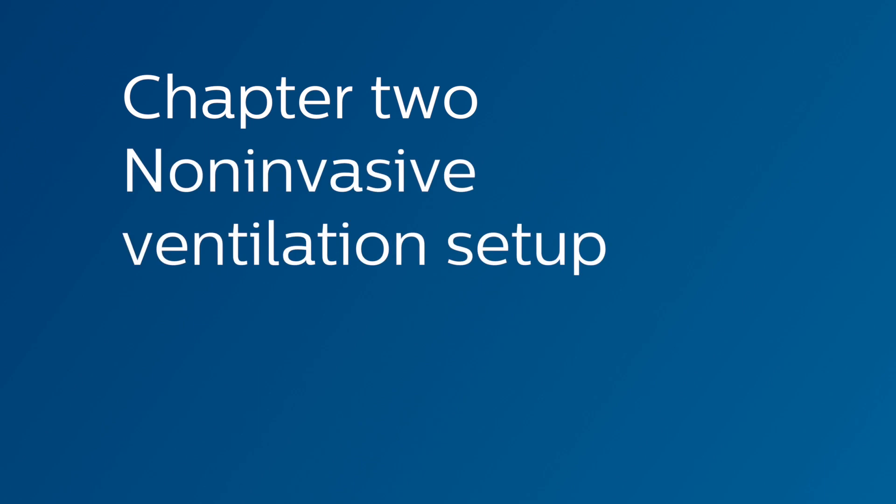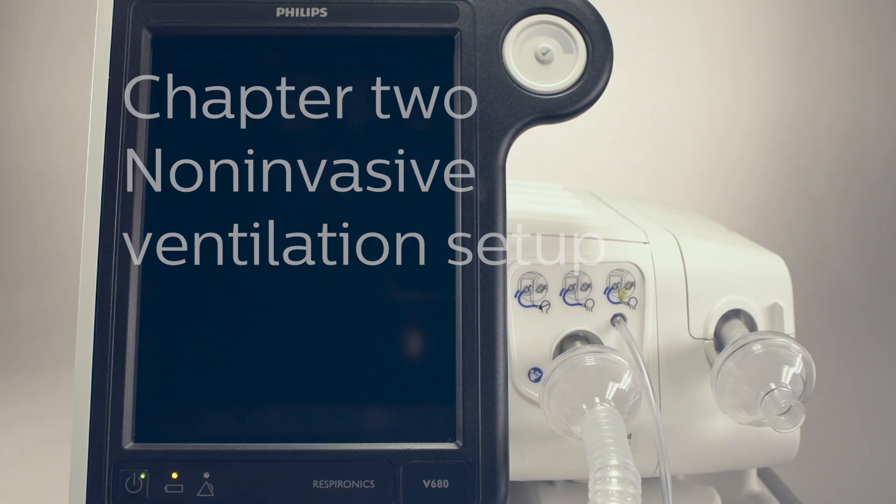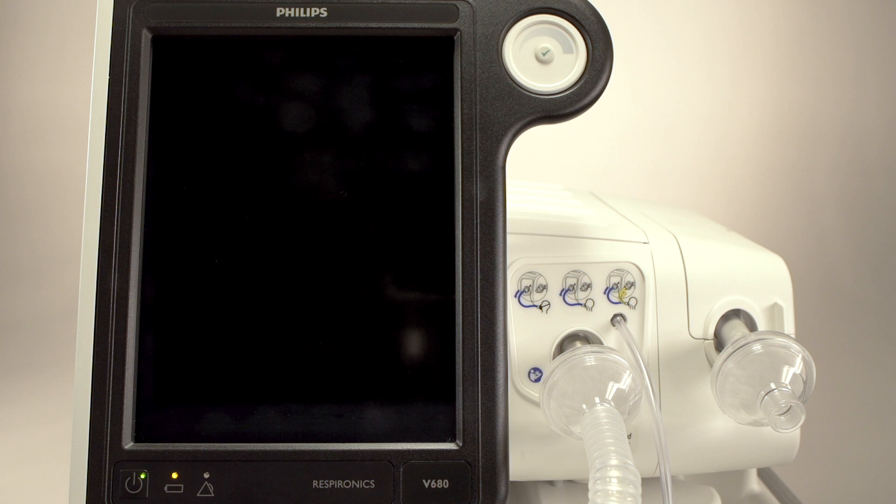Chapter 2, Non-Invasive Ventilation Setup. Let's continue our demonstration by setting up V680 for non-invasive ventilation.